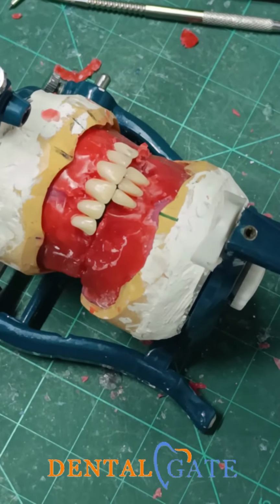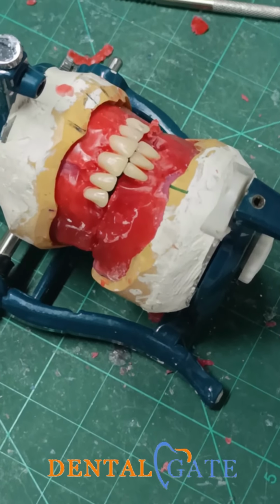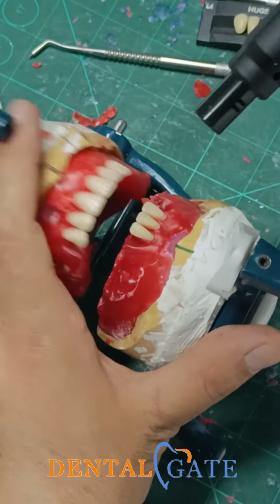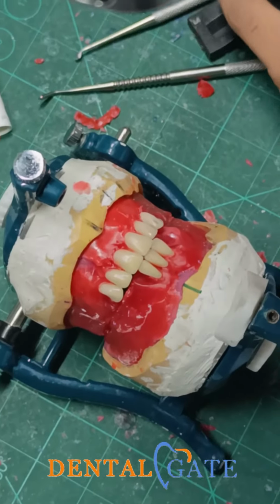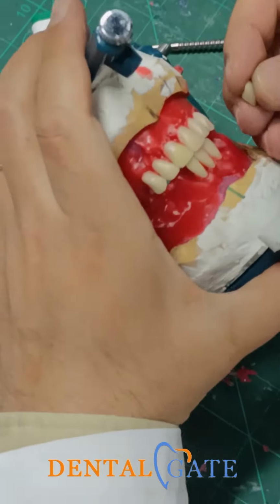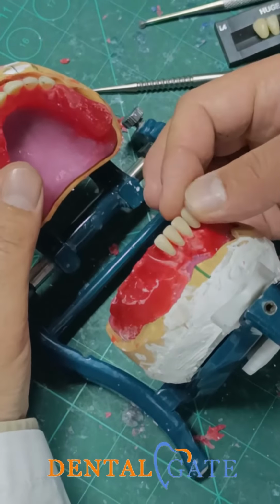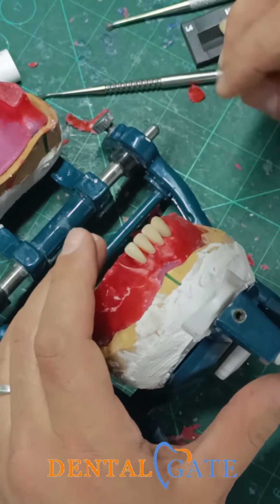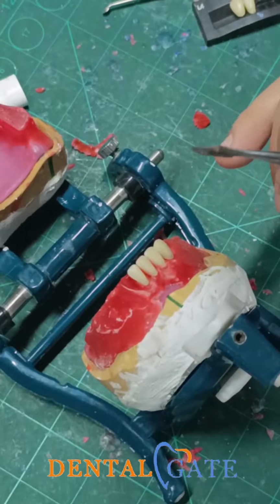Make it, please. Make these criteria. The criteria is more essential to be performed within the canine. So, if I had a correct position to all teeth, I will put my canine here. You can see now, make initial checking of the position of the canine. What do I need from the lower canine? In the first place, I should preserve the contact area. So please, now make inclination.